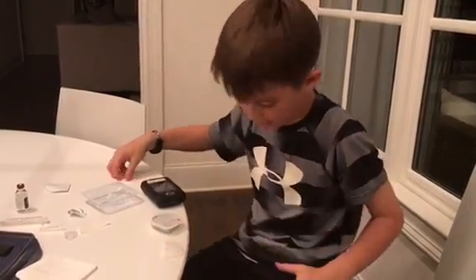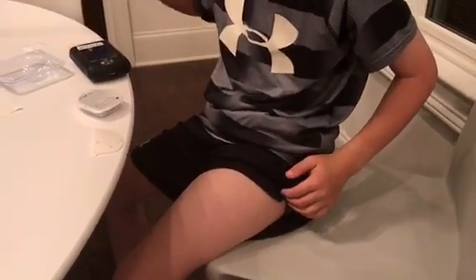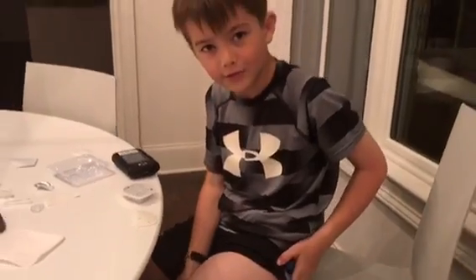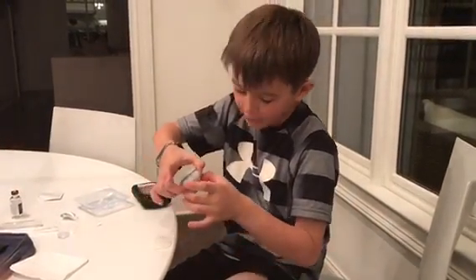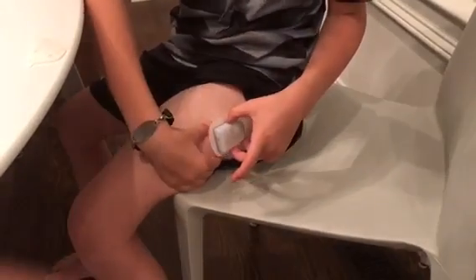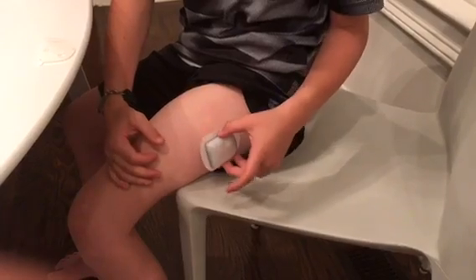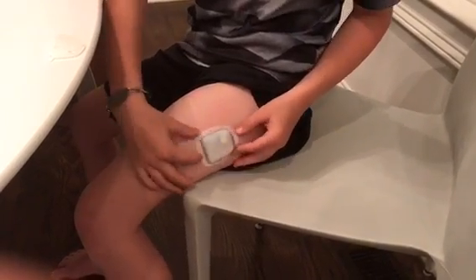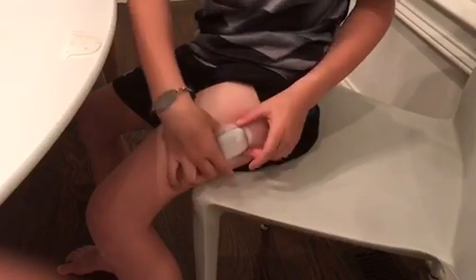Set it back down. Then wipe the spot I am putting it on. Now I am going to let it dry for a second. Now that my site is dry, I will apply it. I am doing it about where the fattest area is. Now I am going to make sure it is sticking on.